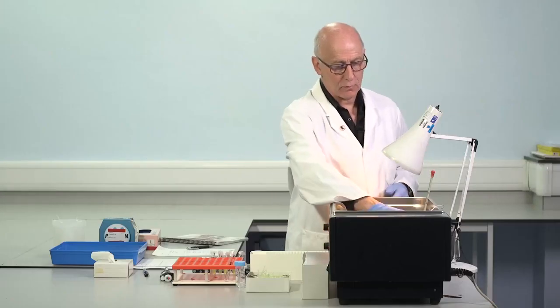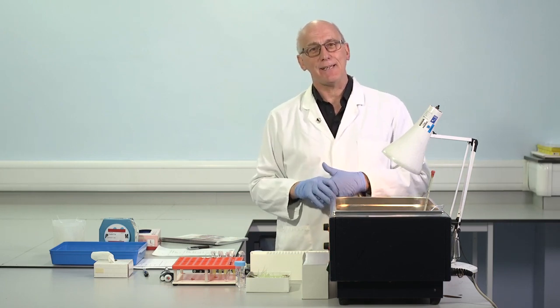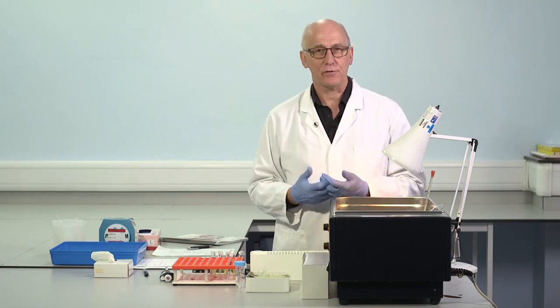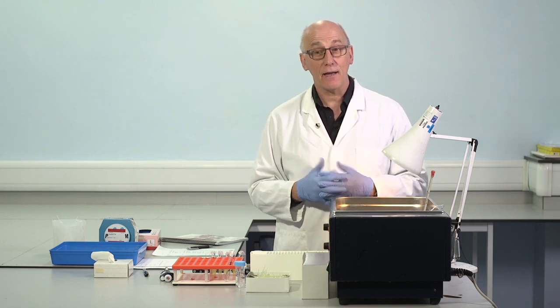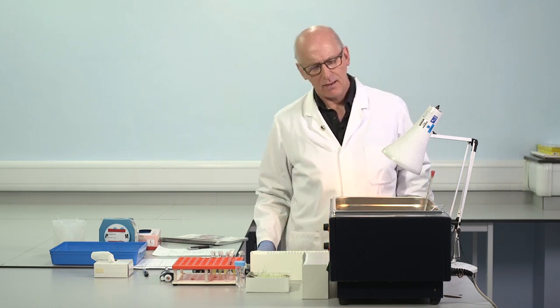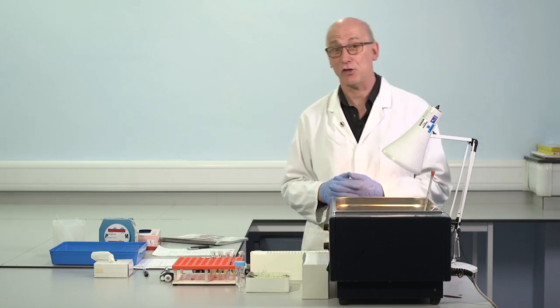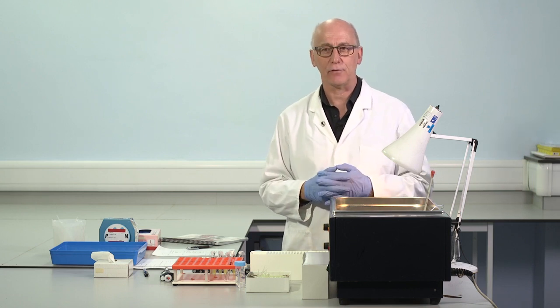So this also goes in the water bath. I think whenever we're performing APTT tests, it's really important to begin with a control. We have guidelines available to us, the WFH Laboratory Manual we've already mentioned, but also other national and international guidelines. And a common feature in all of those guidelines in relation to APTT is that we should test at least 2 levels of control.